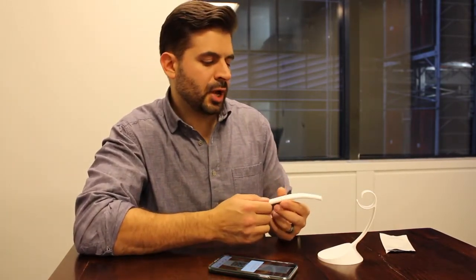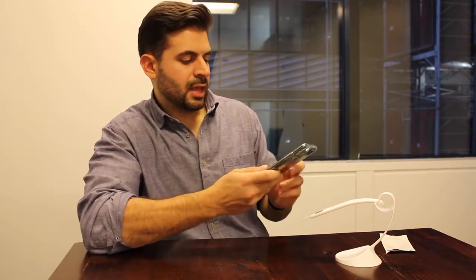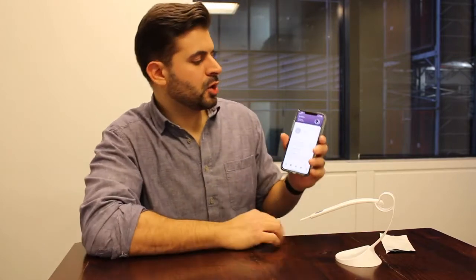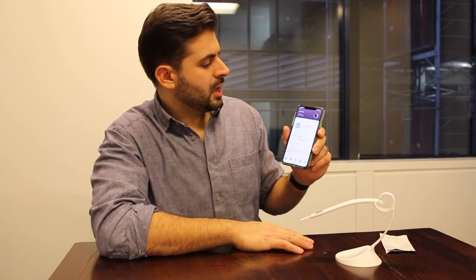This is saying that this test wasn't populated, and it knows that because there are no lines on it — no control line and no other test lines. You will be redirected upon a successful scan right to your home screen. I'll show you one more time what that workflow looks like if you're not holding the test in your hand: go to scan, you have a scanning window, and the goal is to line up that QR code. Once you get a feel for it, it works really quickly. You know a test was successfully scanned if you end up back on your home screen with the button now gone.